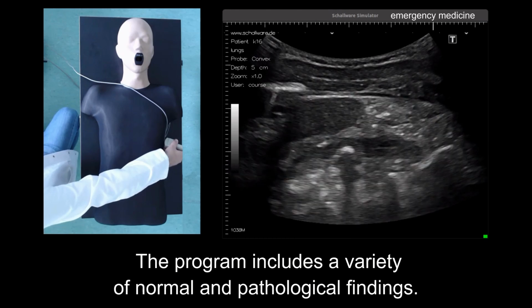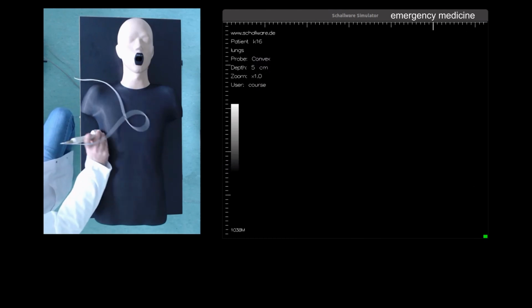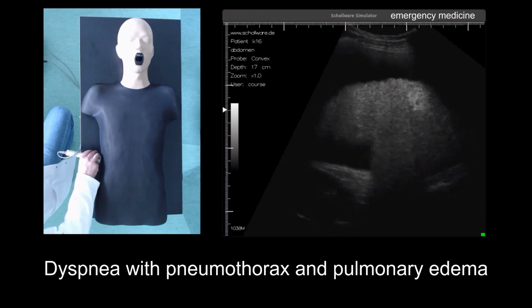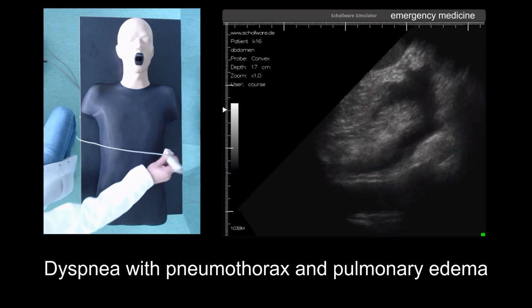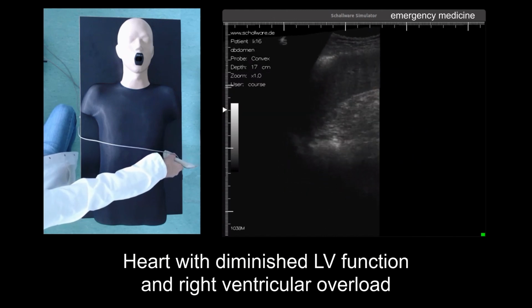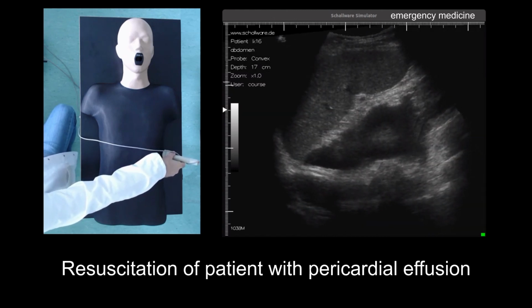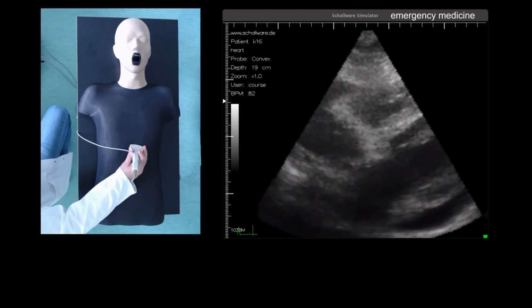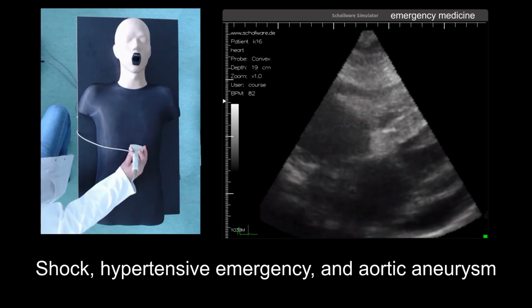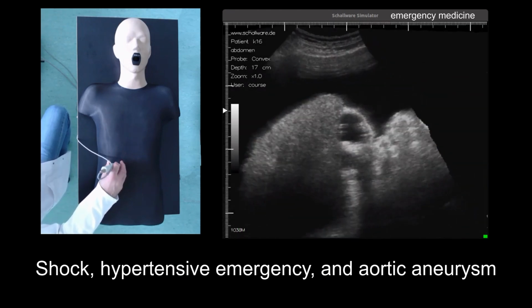The program includes a variety of normal and pathological findings, such as dyspnea with pneumothorax and pulmonary edema, heart with diminished LV function and right ventricular overload, resuscitation of patient with pericardial effusion, trauma with hemothorax and free abdominal fluid, shock, hypertensive emergency, and aortic aneurysm.